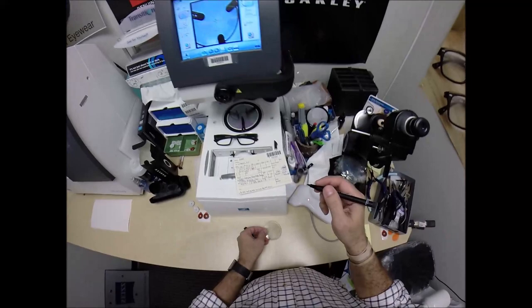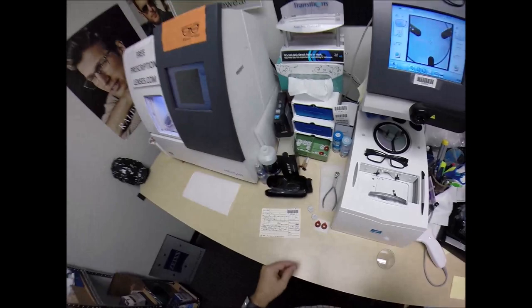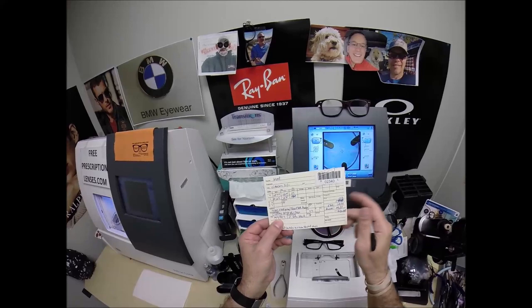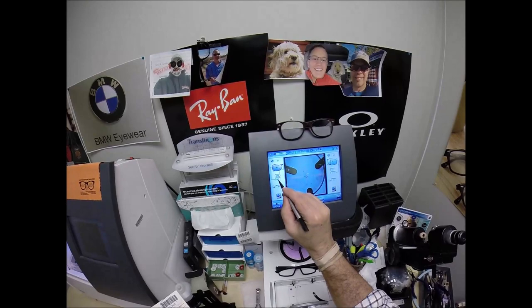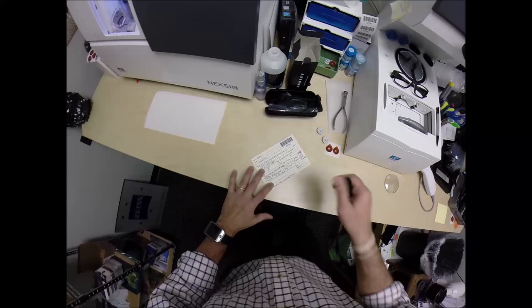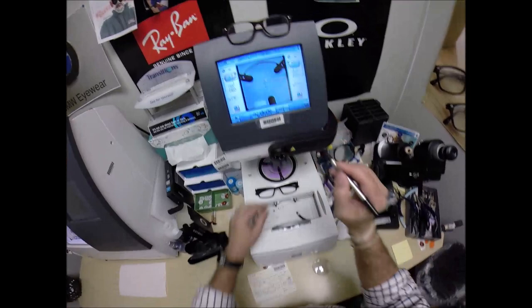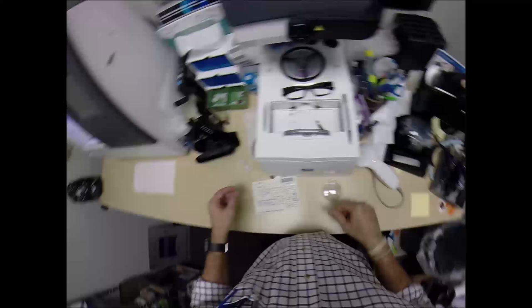And if you guys missed any of that, let me recap. That joke's for me, I don't care if you don't laugh. Let's go ahead and get the pupillary distance and optical center height. Your right eye is 34.5, the computer starts at 32.5, so I'm going to tap the button until we get to 34.5. I want to raise the optical center up two millimeters to 18. The blue cross is the geometric center of the frame, your eye is just above that.